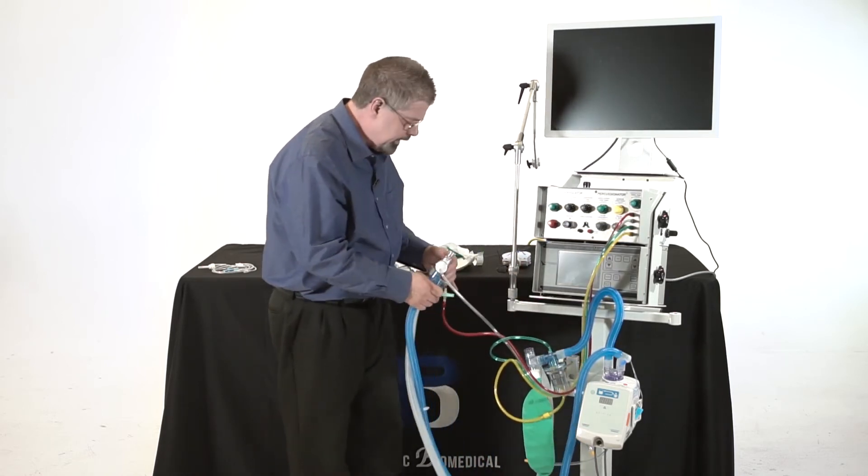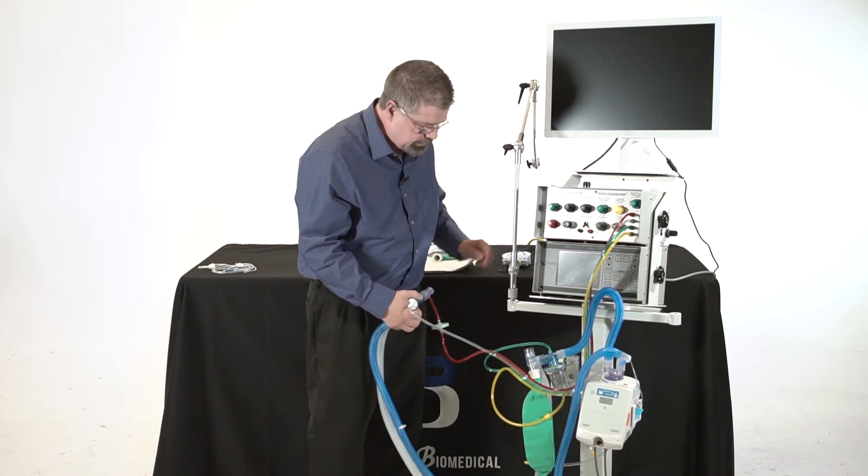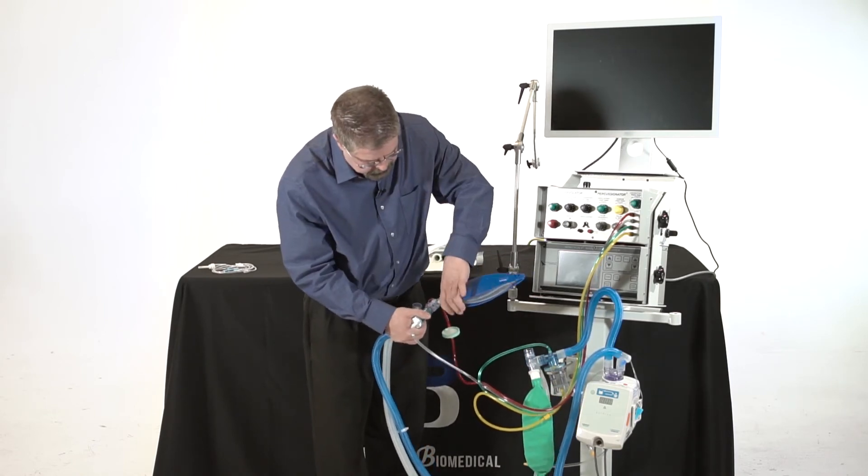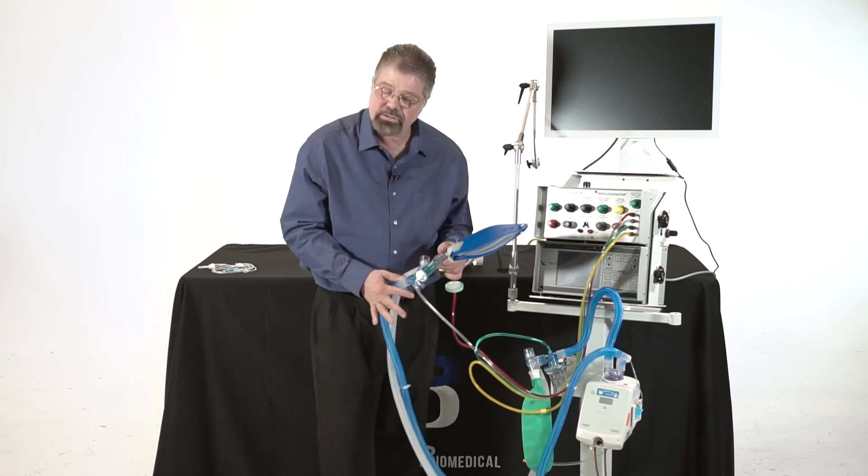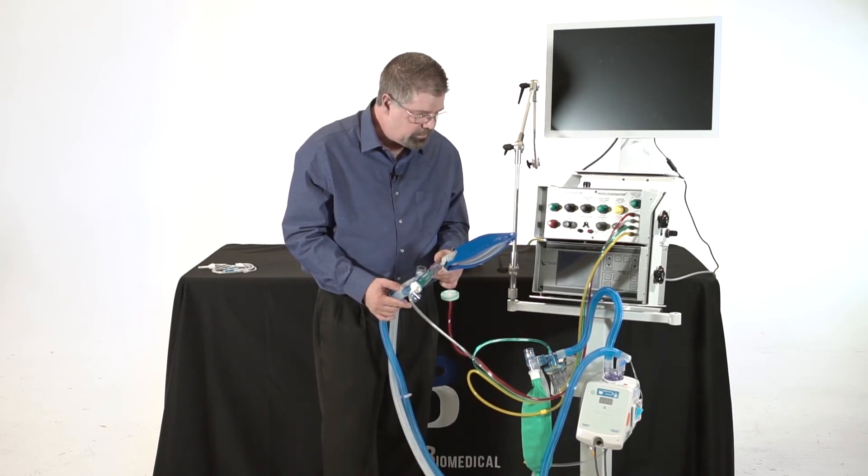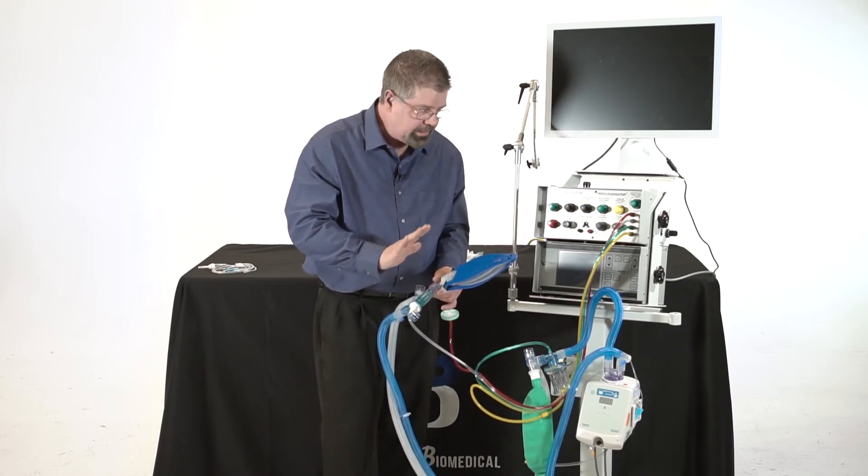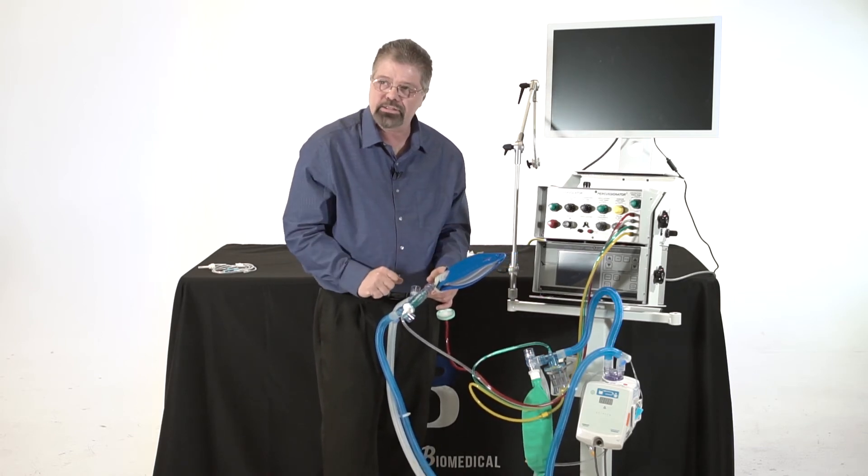Let's go ahead and put the test lung on the circuit itself. And this would be the circuitry itself. We are going to go ahead and we'll kind of rearrange this circuitry and then let's fire up the ventilator and see what it looks like.